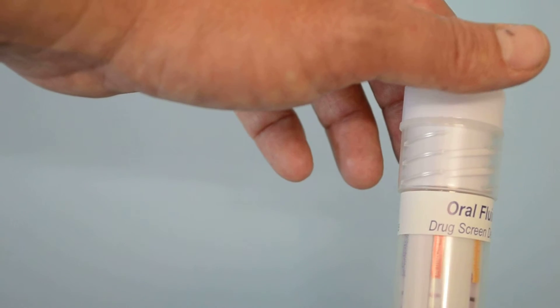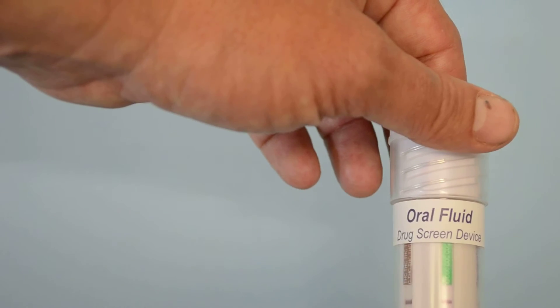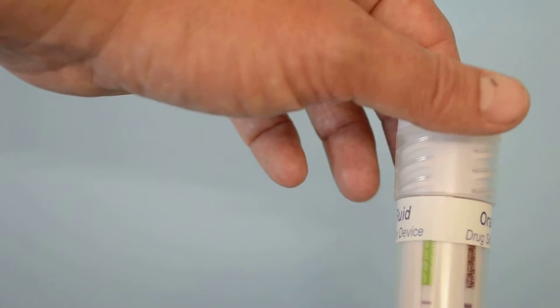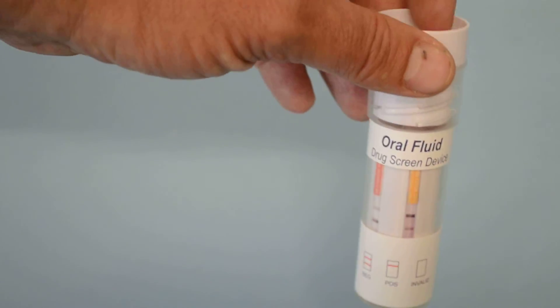There shouldn't be any fading, so the results will still be apparent for a good period of time after the read time which is specified in the datasheets. So that's the UK drug testing six-in-one saliva tube demonstrated.